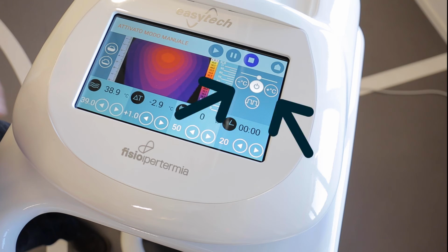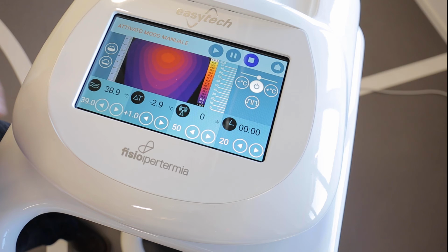There are also buttons to raise the intensity of the treatment, while increasing the temperature of the liquid in the bag and the delta, or decrease the intensity by lowering the temperature of the liquid in the bag and the delta. Modulating the temperature using this button will not cause you to leave the automatic mode. With the central button, you return to the original setting.